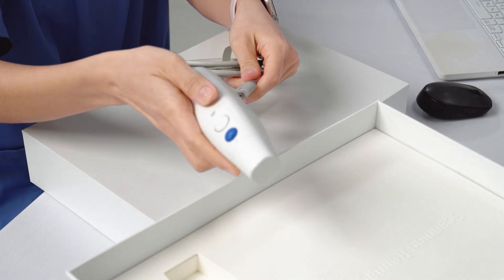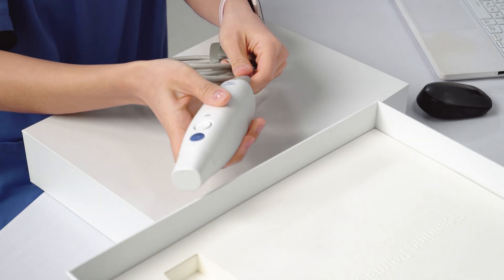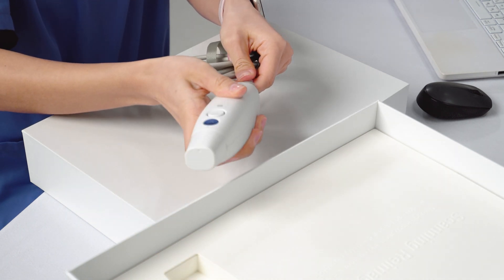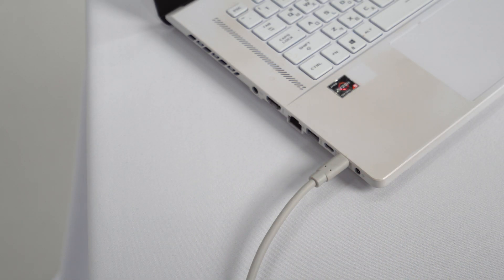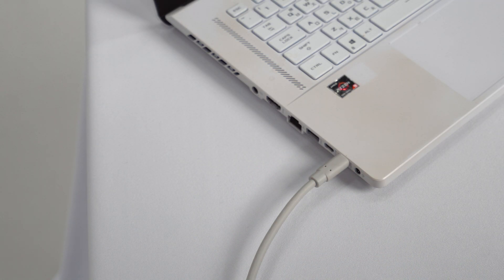We're going to connect the scanner directly to the laptop. Use this cable to connect the scanner to the PC and you're done!